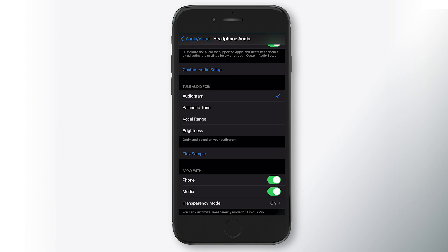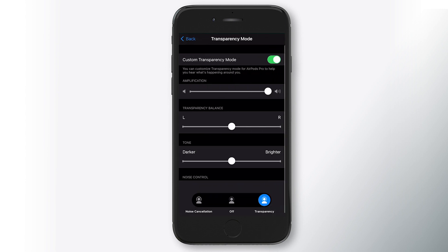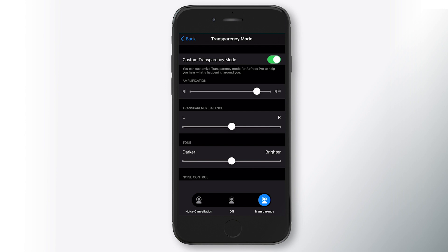As you see, that slider goes away because your audiogram doesn't need a secondary slider. It knows what your loss is and it can adjust based on that. And really the only other thing is just to constantly be in here and tweak this until this is comfortable. Just to keep in mind, it is not going to be the level of boost that you're going to need if you have above moderate hearing loss, especially if you're used to wearing hearing aids. But based on my experience with hearing aids, this is as good, if not better than the last three pairs of hearing aids that I trialed. And the audiogram is almost dead on the audiogram I got professionally from my audiologist. So I'm pretty impressed with that.